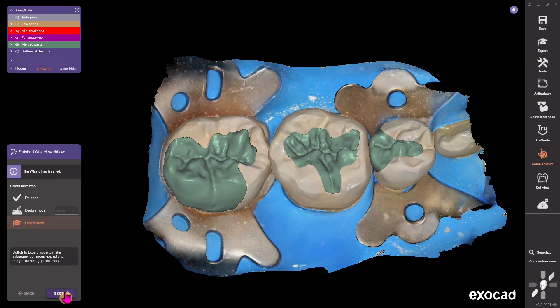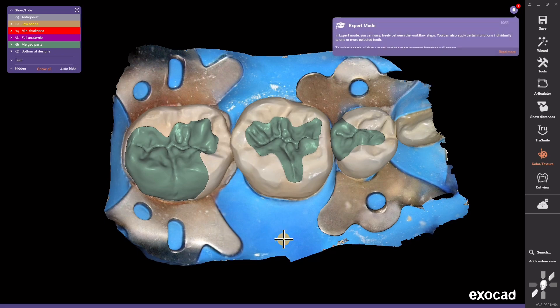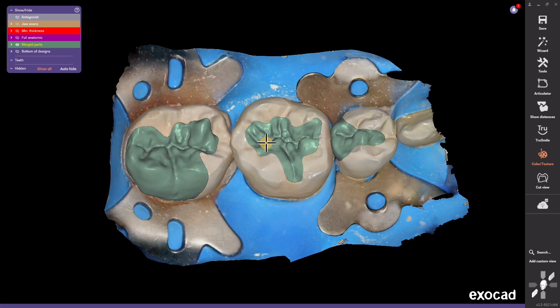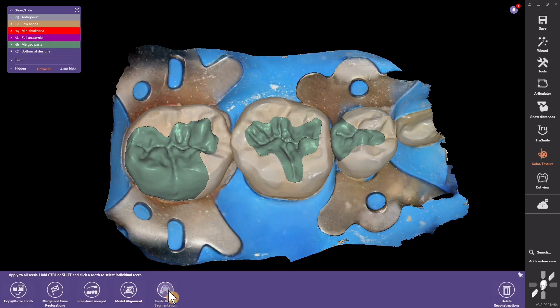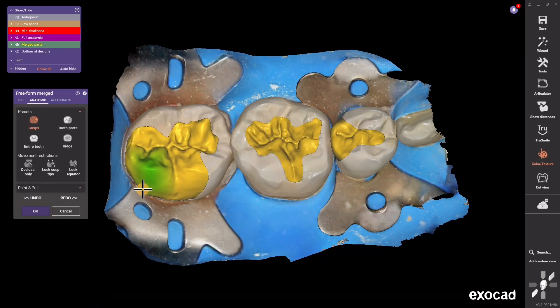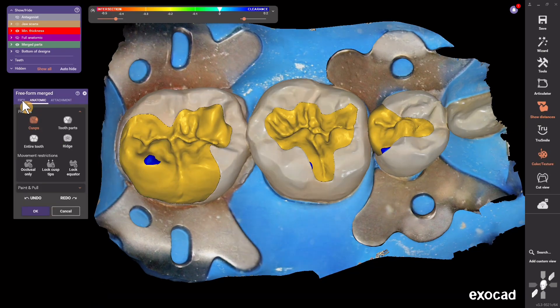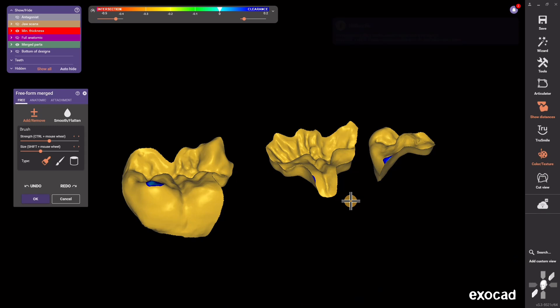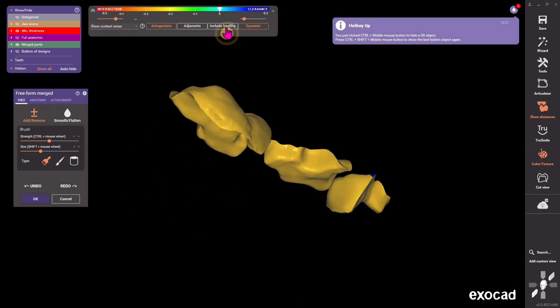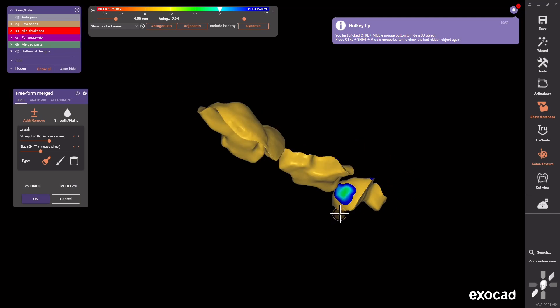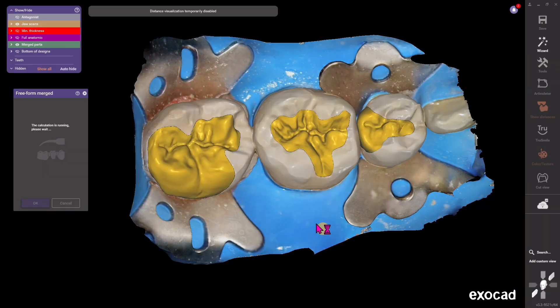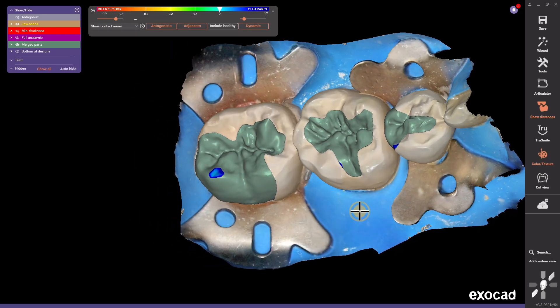To go back and change things, go to Expert Mode and hit Next. Alternatively, you could hit Expert Mode up at the top right. Once you're in Expert Mode, you'll see very limited options to make changes. The only thing you really have is the Merge Freeform where you can come in and sculpt minor things on your final parts — maybe add or modify a proximal contact a smidge. But honestly, we don't really use this tool much because typically these tiny changes could just be done with a felt pad or wheel.